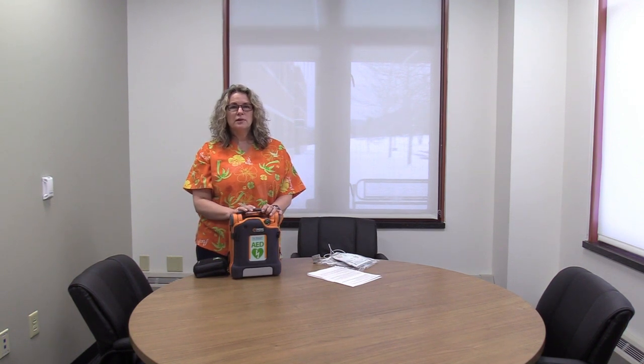Hi, I'm Cheryl Wintermantle. I'm the Midland High School nurse and I just wanted to give you some information about the equipment that we use here. We use these models of AEDs, and even if you're not certified in CPR you can still be part of the solution when an emergency happens. I just want to get you familiar with our AEDs and give you a few tips so you'll feel more comfortable with them.